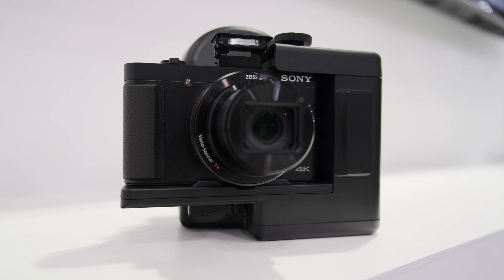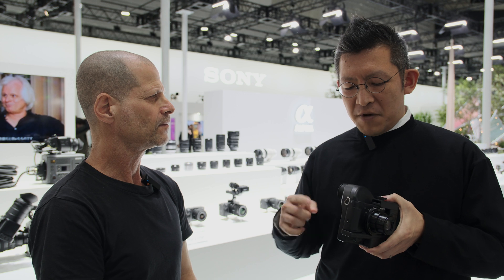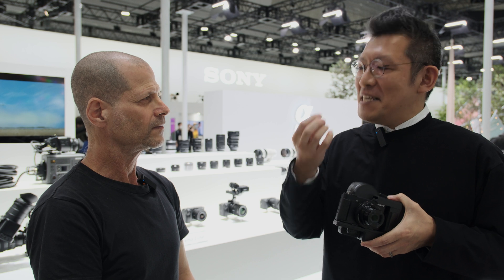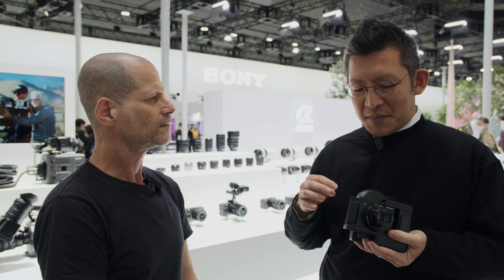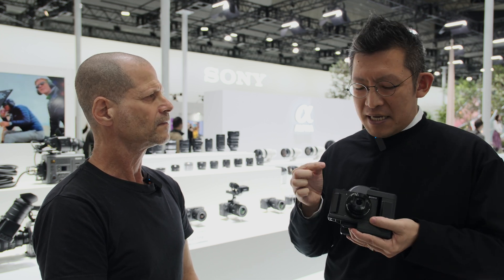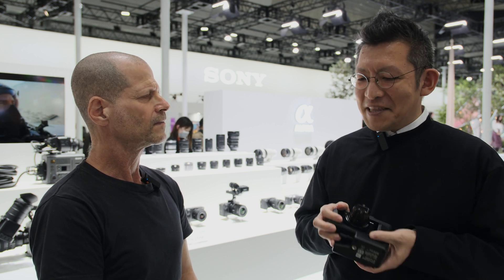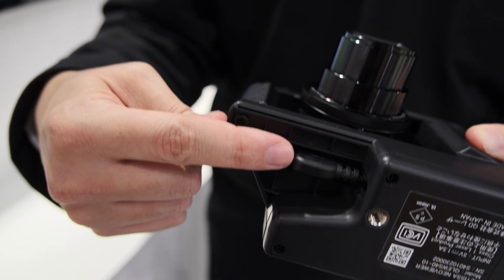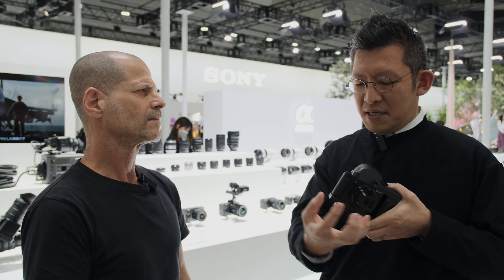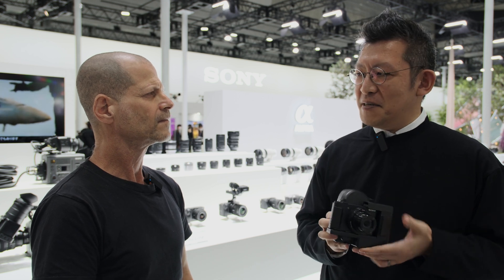So this is now paired together with a Sony camera. Why did you choose that specific one? We needed a very good camera, and searching the market, Sony has the best camera. It has a very compact, light-weighted body, an incredible zooming function, and HDMI output. It has an HDMI input and the camera has a through-output of the capturing image. So this is the best combination in the world.